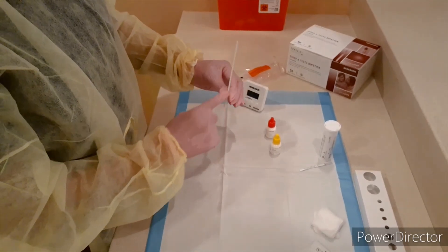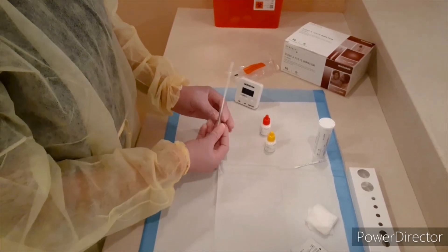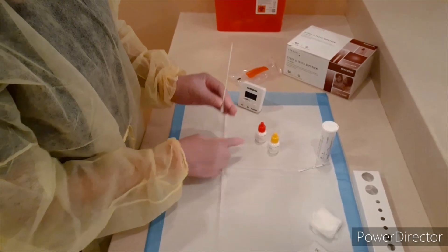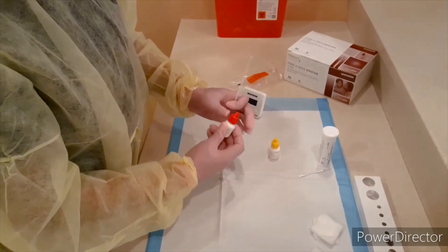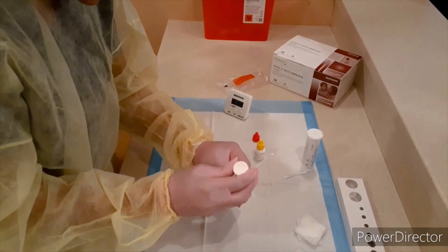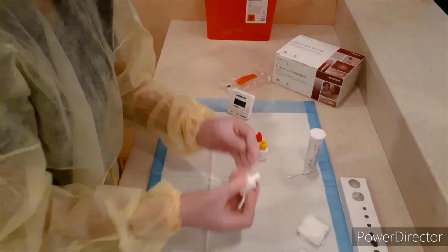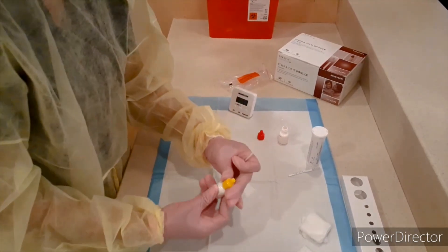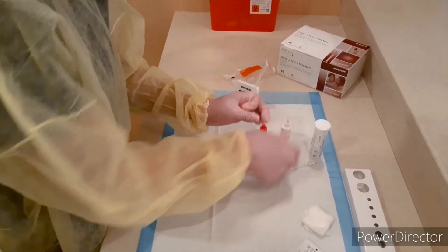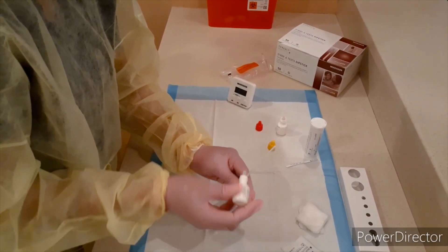I have my sample here, and I put it in a little collection tube that comes in our strep test. What I need to do is add reagent 1 and reagent 2 that come with the test — we add four drops of each into our sample. I'll do reagent 1 first: one, two, three, four drops. Then I'll do reagent 2, not to confuse the lids: one, two, three, four drops as well.